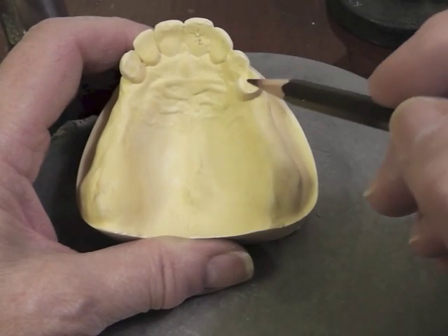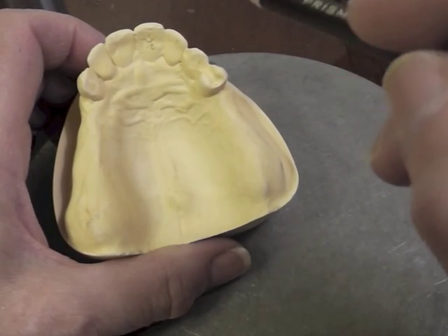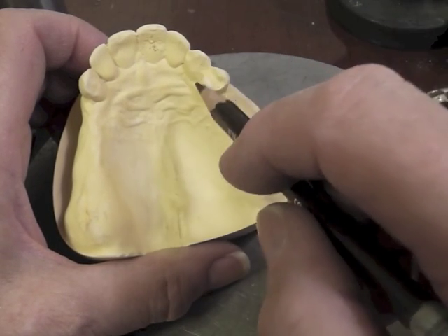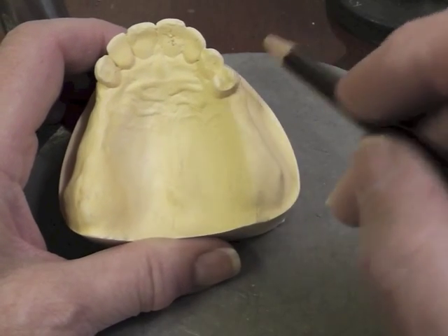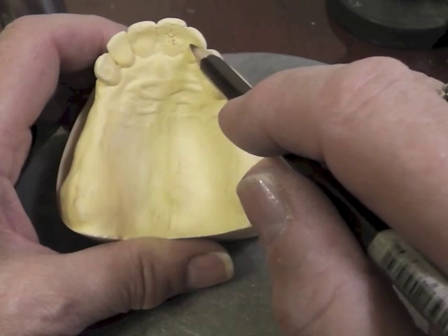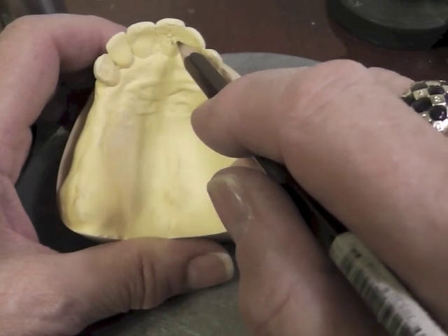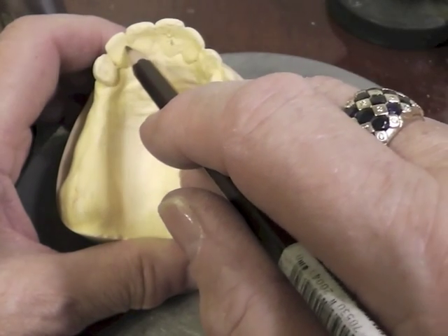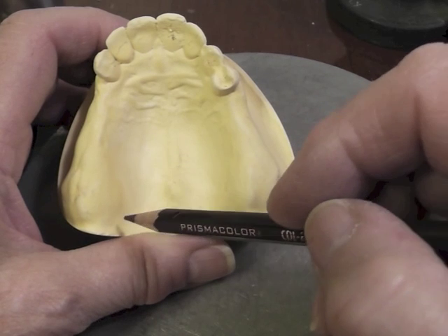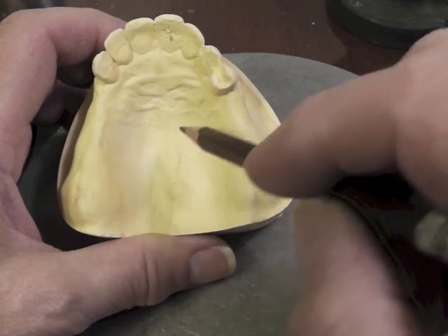On this tooth, depending on what clasping system we use, each one calls for its individual best choice of lingual treatment — meaning dipping down, plating, or what have you. So it will depend on where we find our undercut and which clasp we decide to use on that tooth. Then we're going to plate because we have to get up to this indirect retainer, so we'll just plate all of these teeth in order to have a major connector — more than likely a horseshoe-shaped major connector — because we're going to have to avoid that torus.